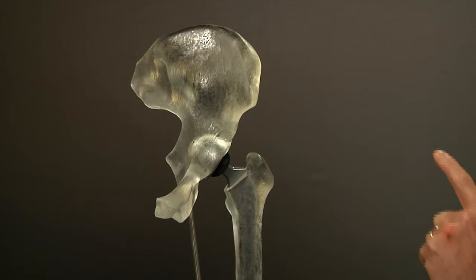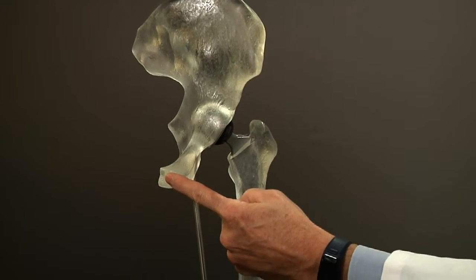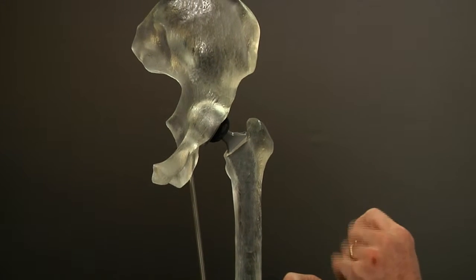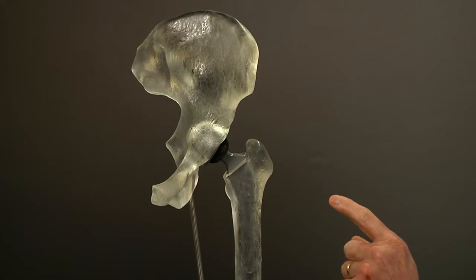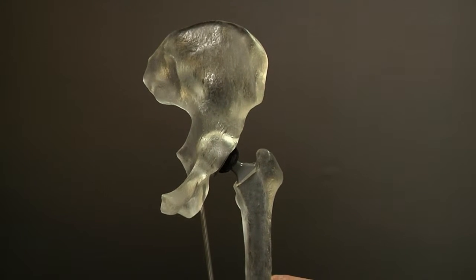This is a model of a hip replacement. This is the pelvis bone, the front of the pelvis, and your thigh bone. There are four parts in hip replacement: the socket, the polyethylene, the ball, and the stem. I'll show you those parts individually now.